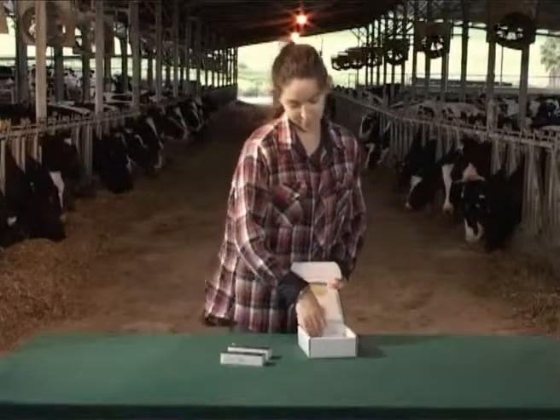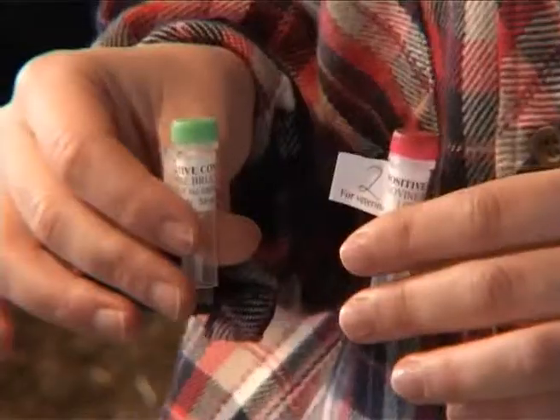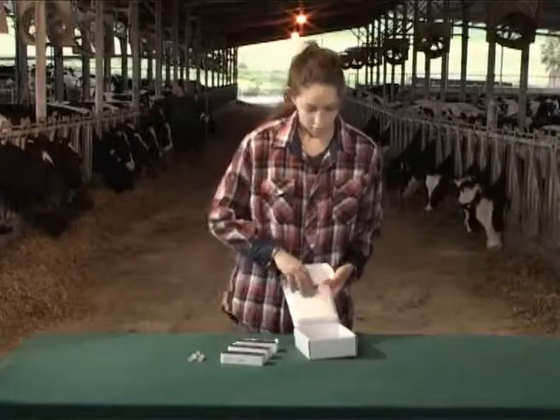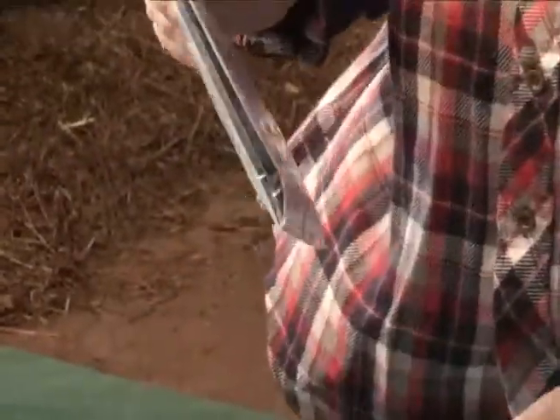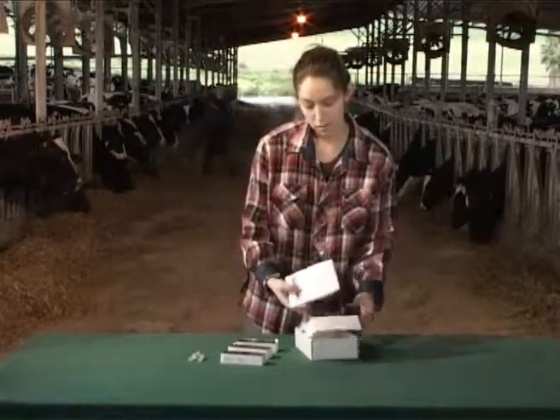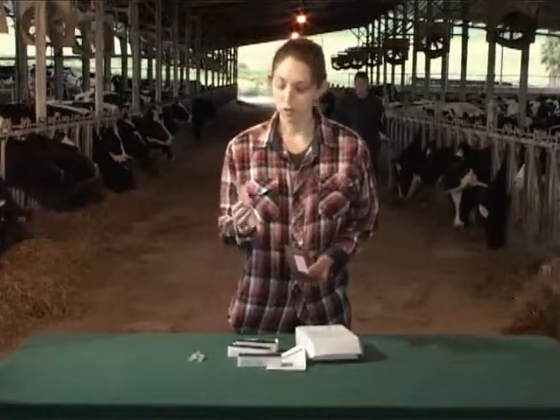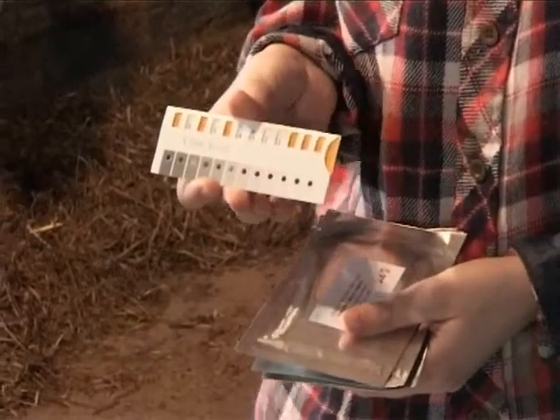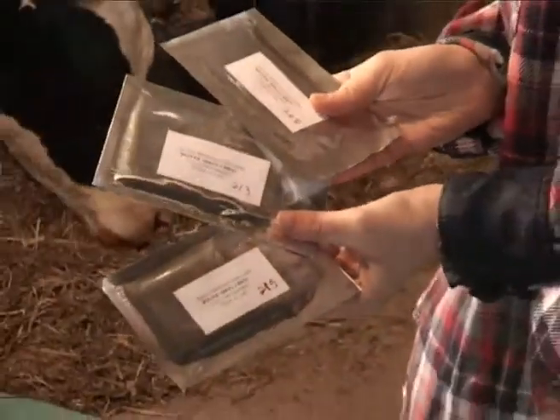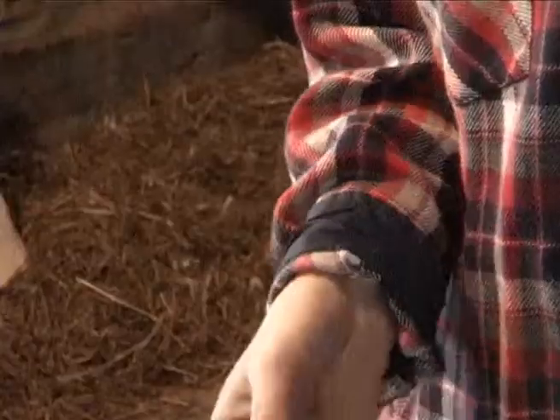The immunocomb kit contains three reaction trays. Each tray allows for up to ten tests, a positive control and negative control, instructions, a color scale known as a comb scale, three combs of immunocomb wrapped separately, and a plastic tweezer to facilitate the opening of the compartments.